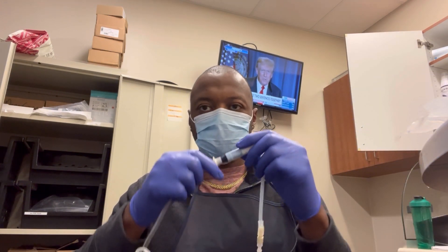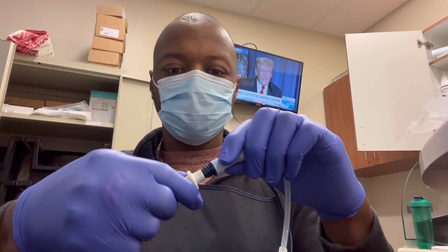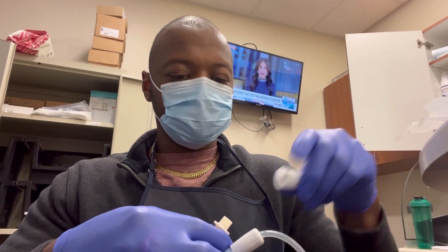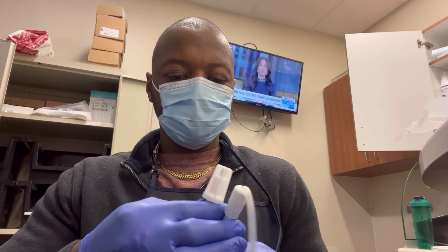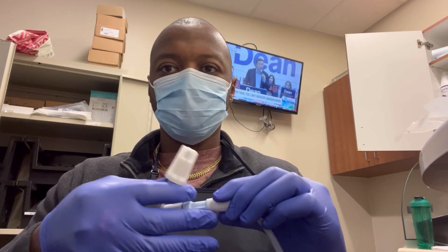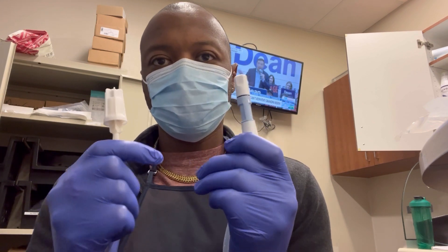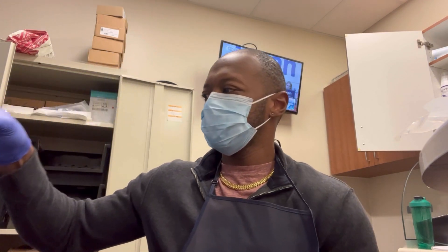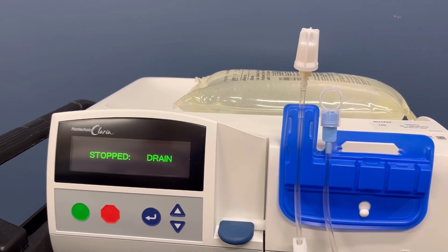I put them back on the packages and I'm ready to disconnect. I'm going to untwist it a little bit to get ready. I'll keep my transfer set aimed down so air doesn't rush in, then screw my flexi cap on and screw my mini cap on. I'm going to put my patient line back on the organizer. Drain stopped — line on organizer and I'm good to go.